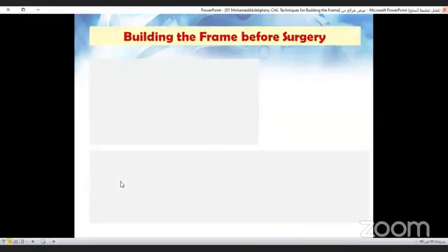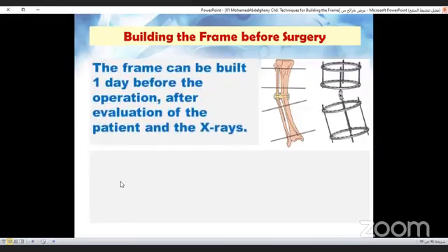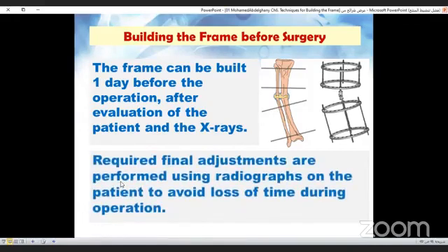Now we come to the other method of frame assembly, which is the prefabricated frame. The frame can be built one day before the operation after evaluation of the patient and x-rays. The required final adjustments are performed using radiographs on the patient to avoid loss of operative time.